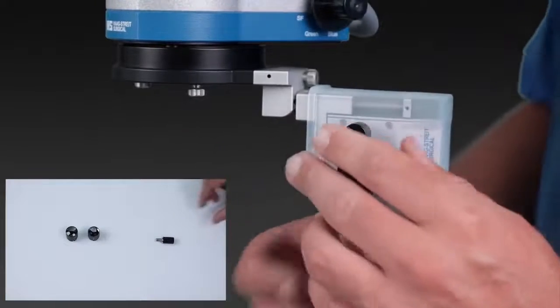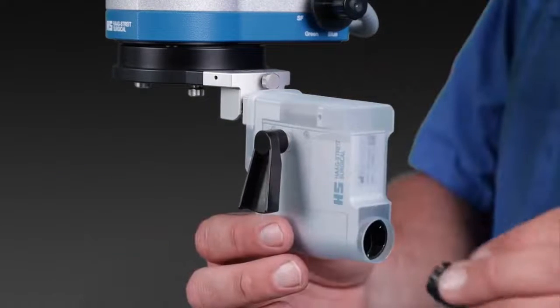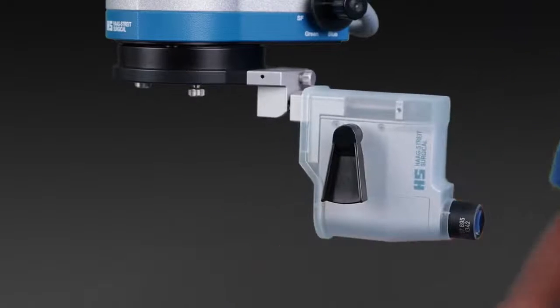Focus levers can be attached to both sides of the inverter body. The lens with its bayonet mount snaps quickly and safely into position.